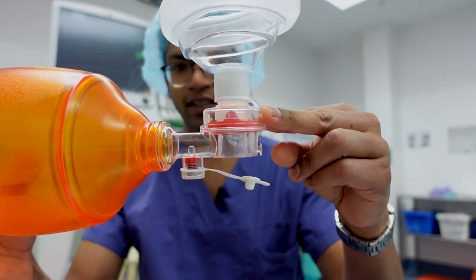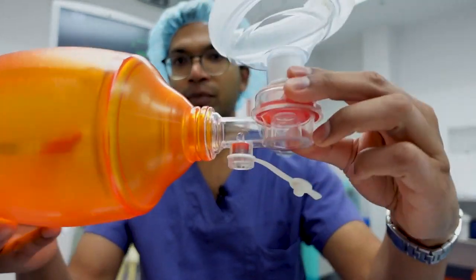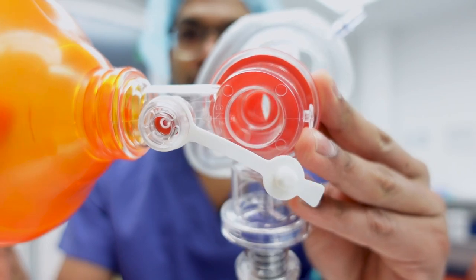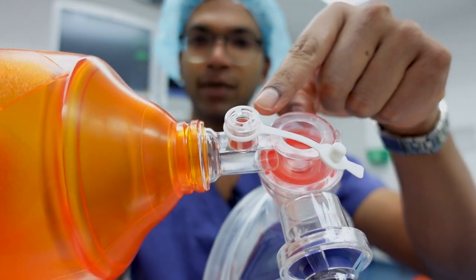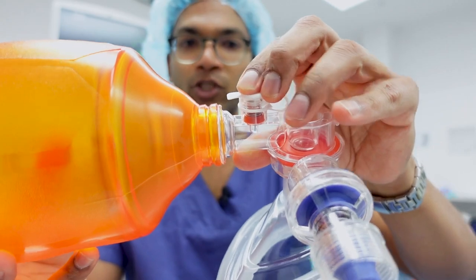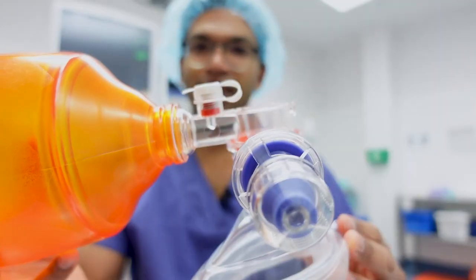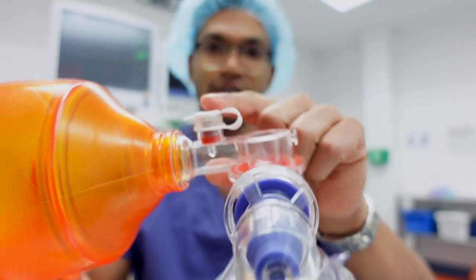It then attaches to this little device here, which is essentially a couple of connections and a valve. As I inflate, you can see that fish mouth valve opens up, so it only allows air to travel in one direction. This port here is a blow-off valve — it can blow off at low pressures, but you can also put this little cap on, which generates a very high pressure seal up to 60 centimeters of water or 6 kilopascals. That means if I have a patient with restrictive or severe obstructive lung disease, I can still use that to ventilate them.